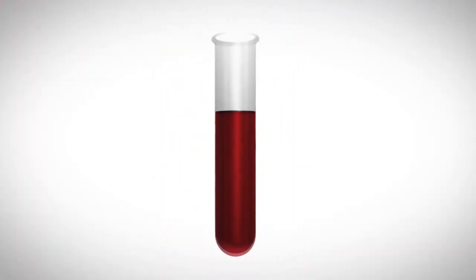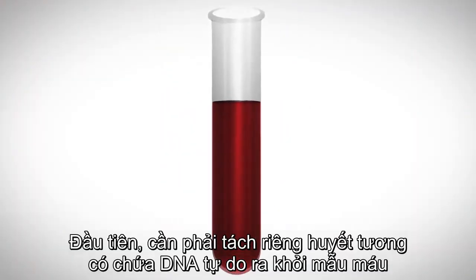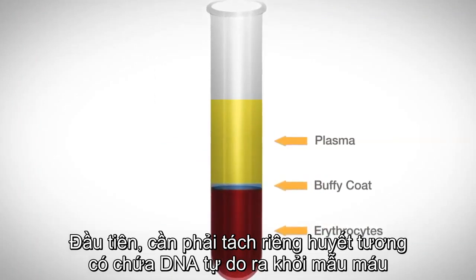First, using a single tube of blood, plasma containing cell-free DNA is isolated.